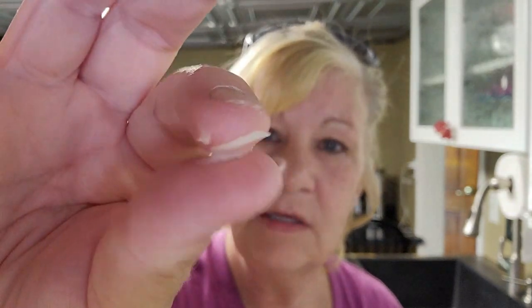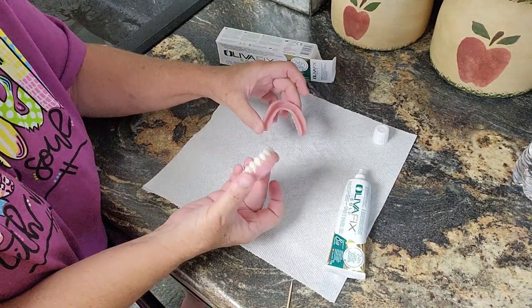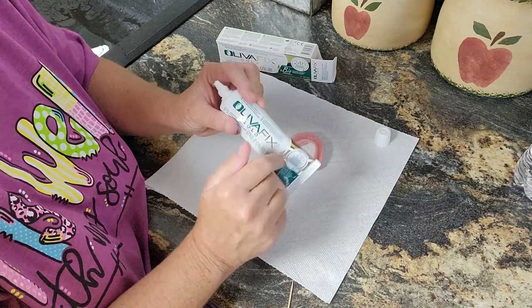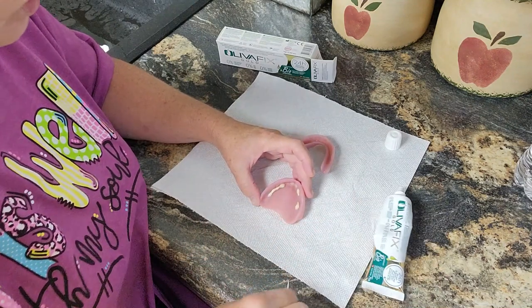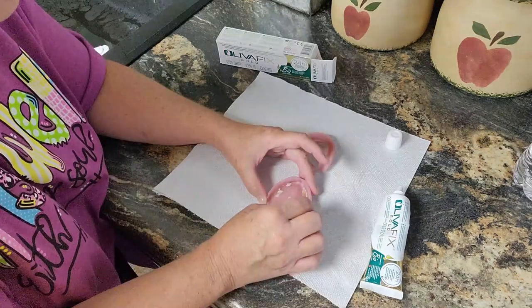It's hard to squeeze out of this tube — it's a sticky, gooey feeling, which I guess is a good thing, and I can feel the oil in there. These are my denture box dentures. I don't normally wear adhesive on the top but for the sake of this video I will. They want you to put it in a dry denture, then take a sip of water because that's what actually activates this product. It doesn't spread very well.